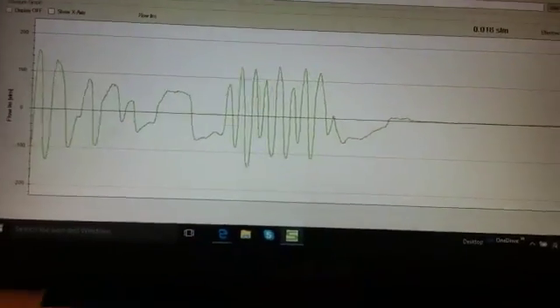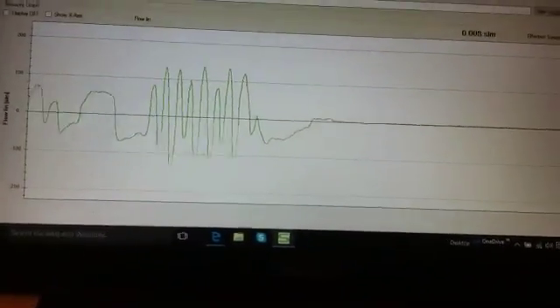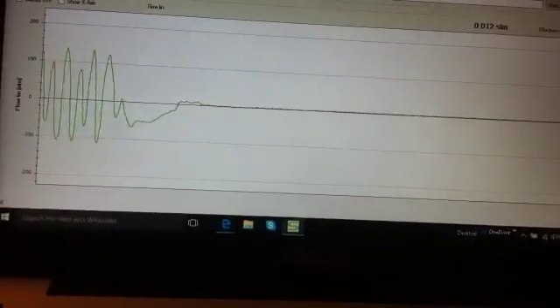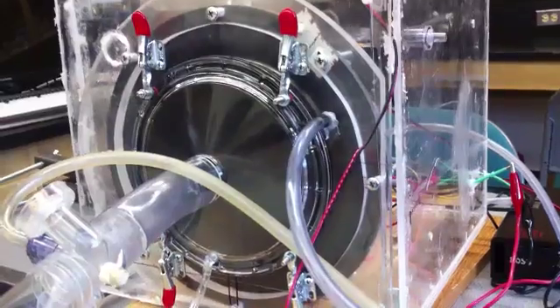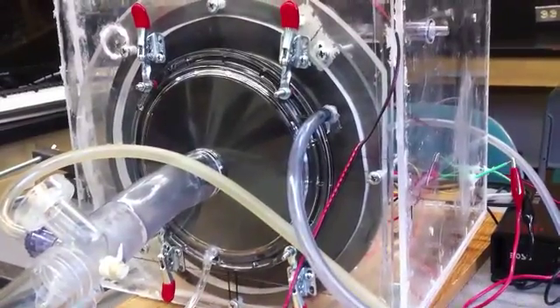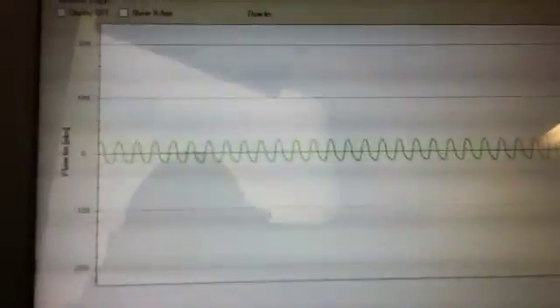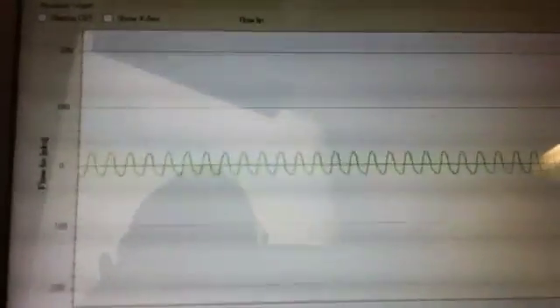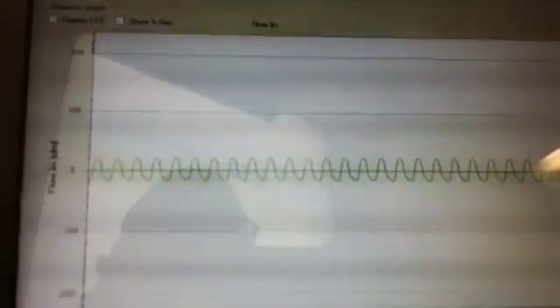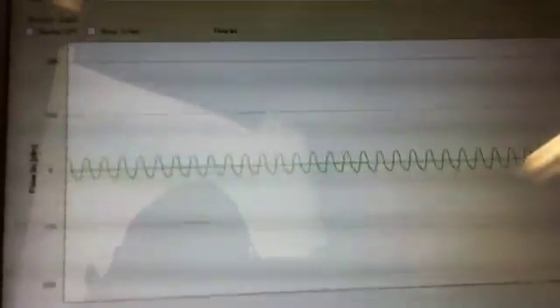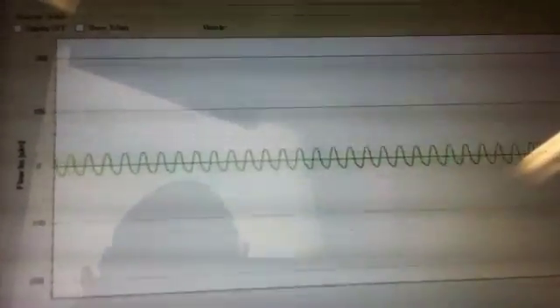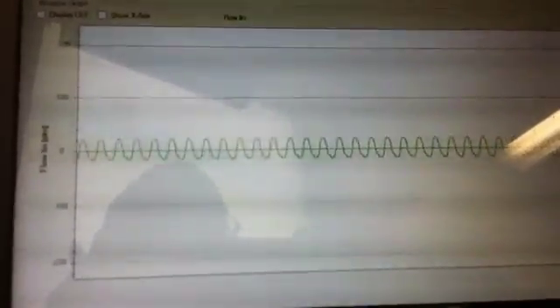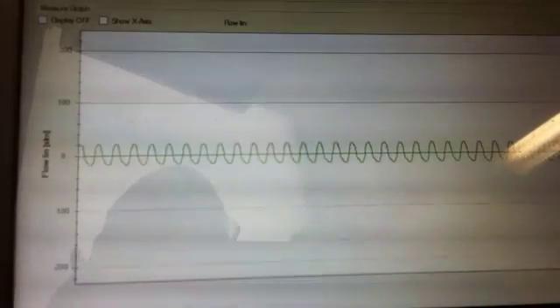So it seems to be working just fine for bi-directional flow. And here we have this flow sensor used in the system. Here we can see a waveform that is practically sinusoidal and bi-directional. So it looks to be working fine. This is a waveform of 6 Hz.